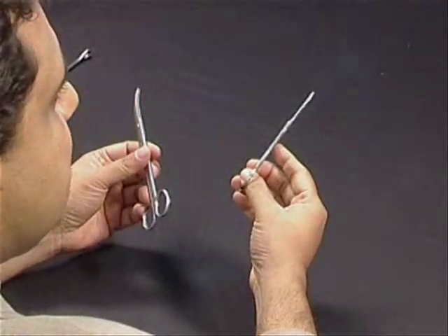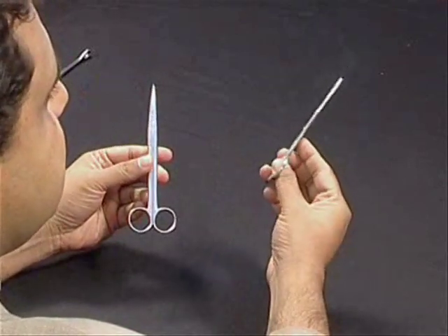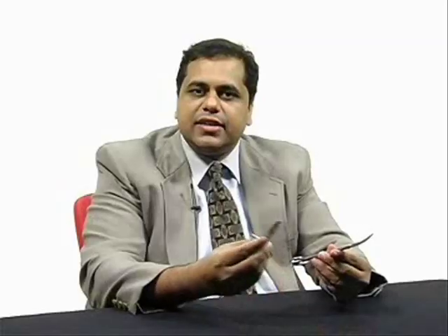Let us now move to a different category of instruments, and that is scissors. Scissors are usually used to cut some structure. Basically you have two types: curved scissors and straight scissors. The most popular scissors we use in general surgery practice is a Mayo's scissors.